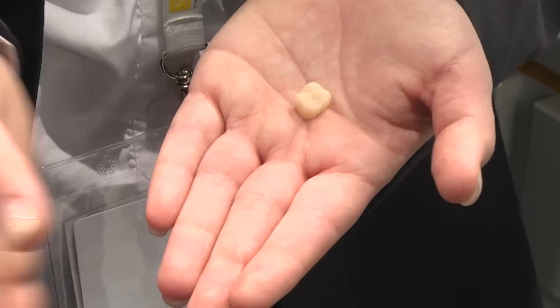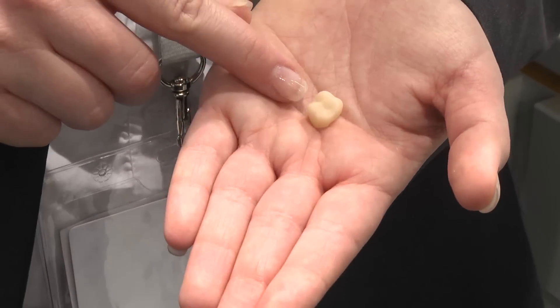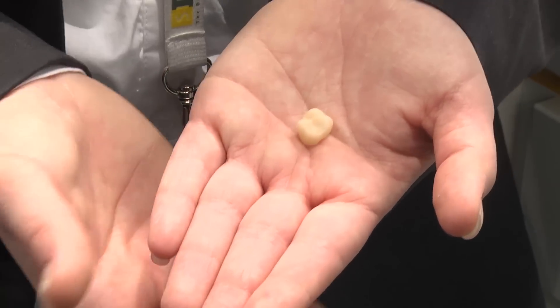After the milling process you will receive a crown like this, and you can decide whether you'd like to polish it with diamond paste or glaze it in a ceramic oven.